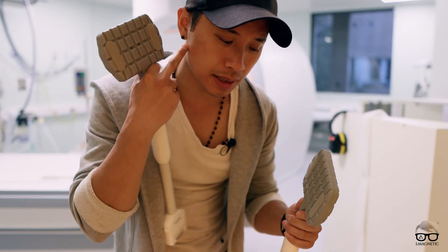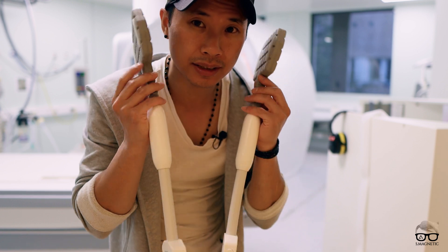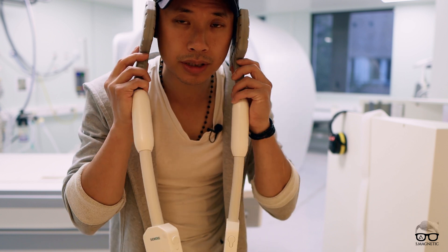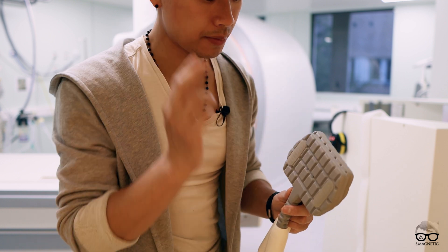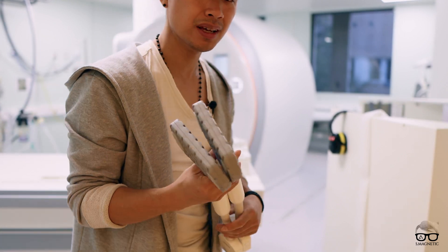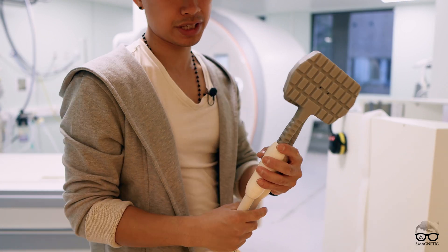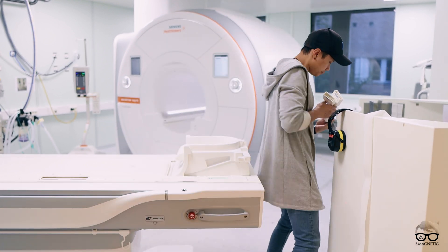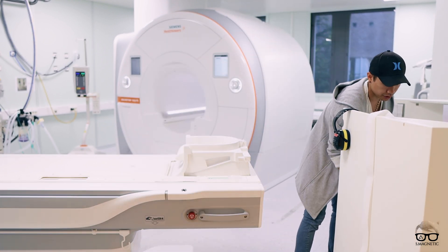We also wanted to have two of those for special purposes, because we have many pediatric cases and also for TMJ imaging. I think it will be very good. We do TMJ on 1.5T, and having two of those close to the TMJ I think will be very good on 3T as well. We haven't done it yet because we just recently got this scanner installed, so there's a lot of things to do — but I'll keep you updated.